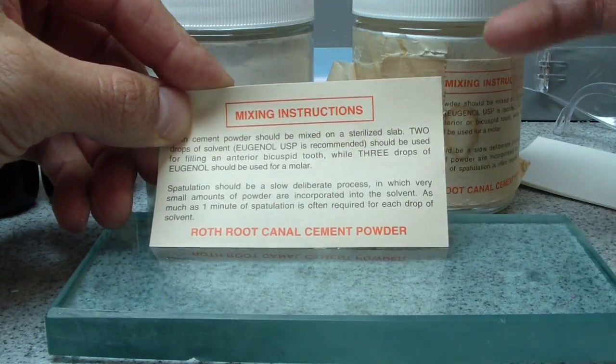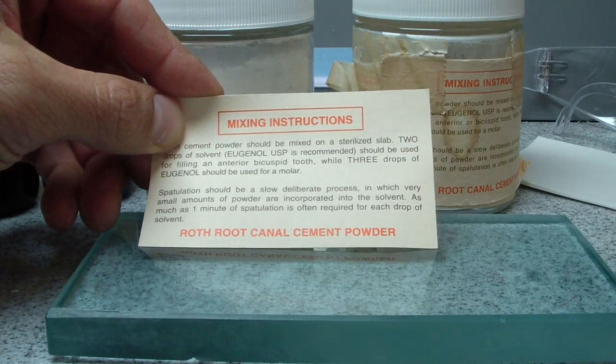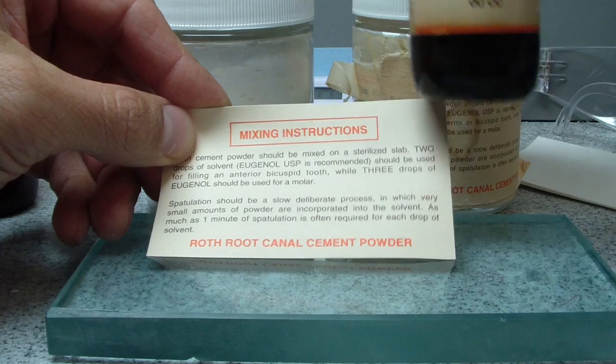So we'll be using that. This mixing is based on the drops of solvent and which tooth you're doing. So it says two drops of solvent, which is eugenol, right here.